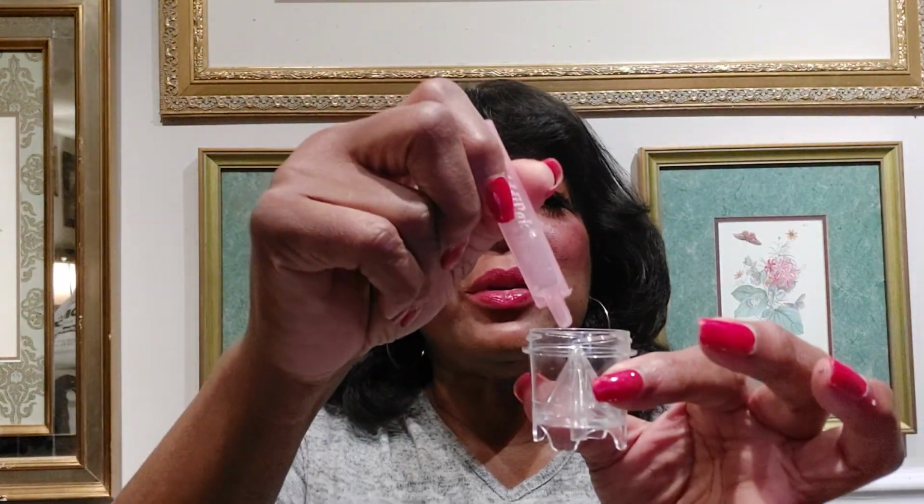1, 2, matter of fact 4, 3, and 4. Now just say you got to give your child an albuterol treatment. You cannot just take an albuterol. It comes in a little tube, something like this, but it's a white tube. They can also give your child a normal saline, which is this here. So just say we're going to give them a normal saline. You just cannot take it and squeeze it into this. It's not going to infuse right.